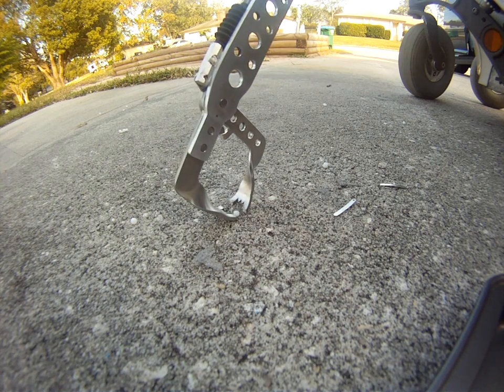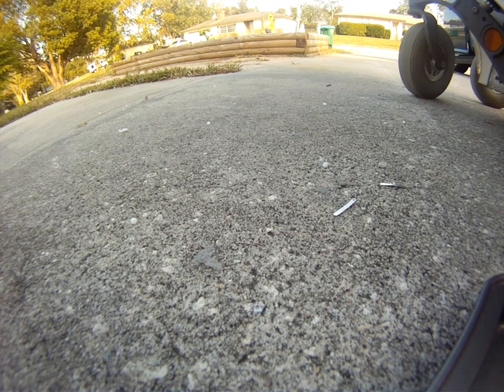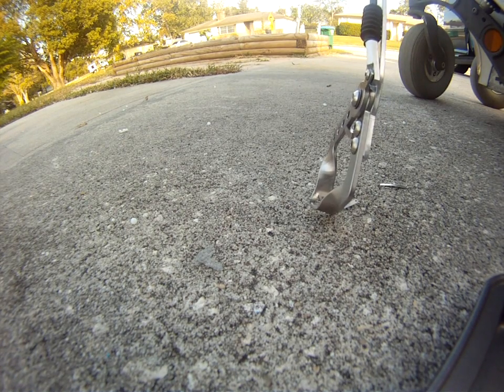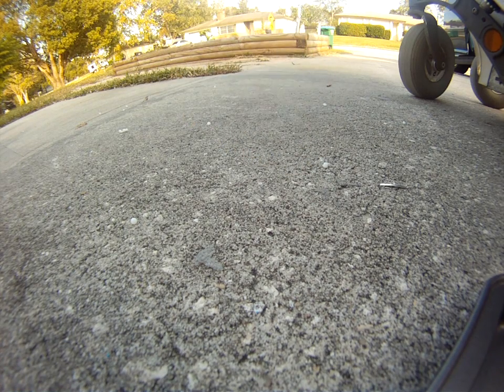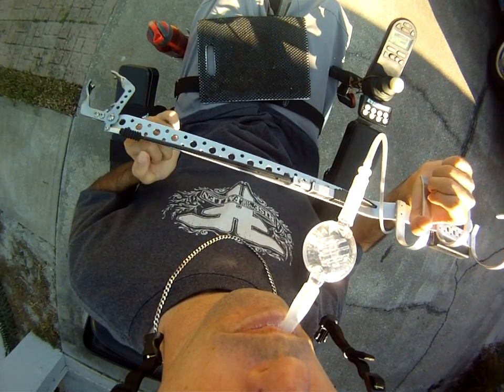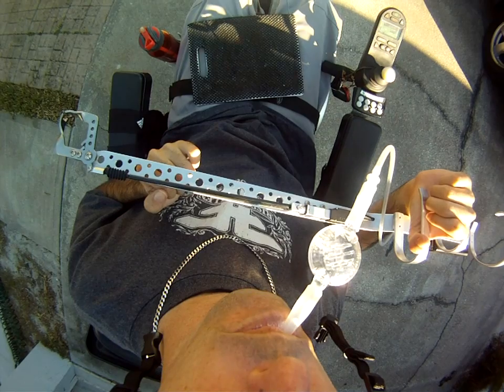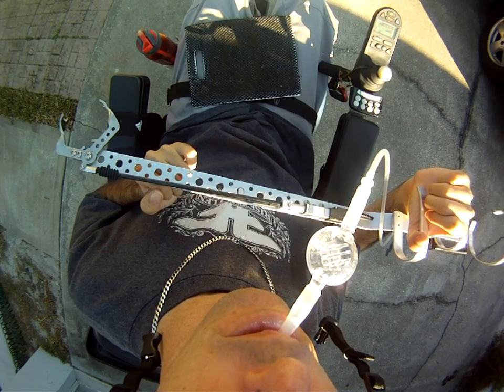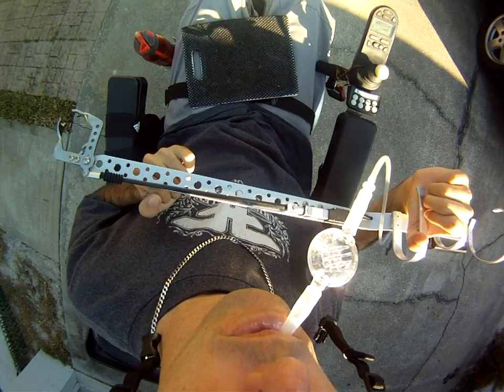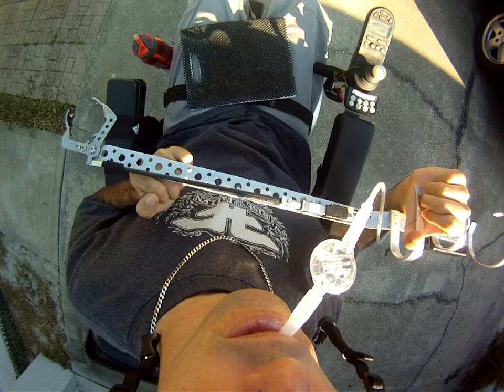This could allow for picking up any kind of small medication, or even a needle if you were to drop one on the floor. Two micropressure switches inside of the housing trigger the mechanism to open and close with the slightest sip or puff into the tube, allowing for amazing precision.